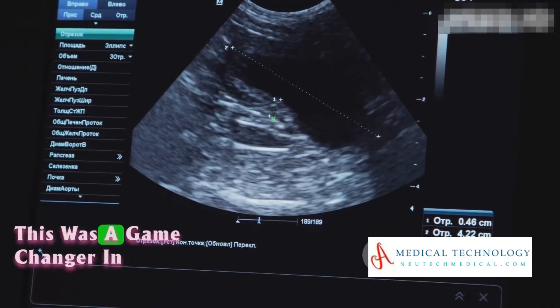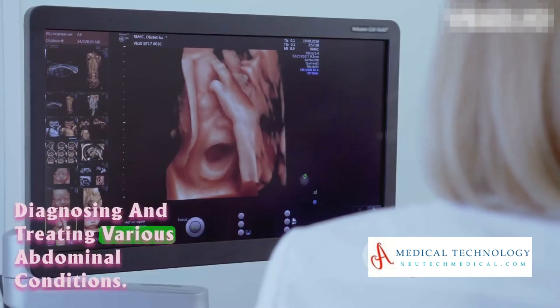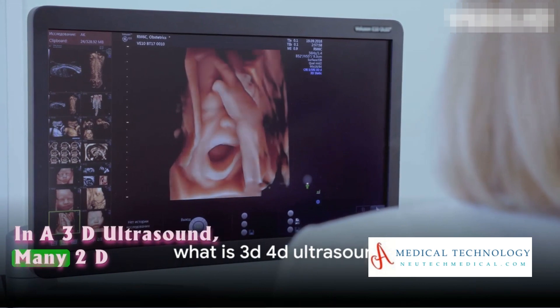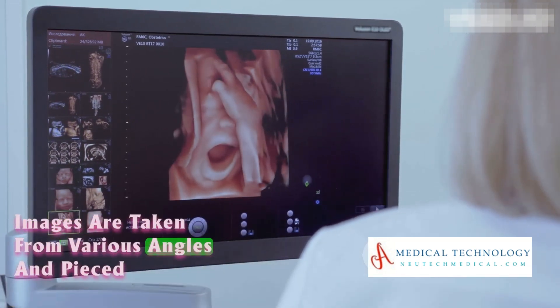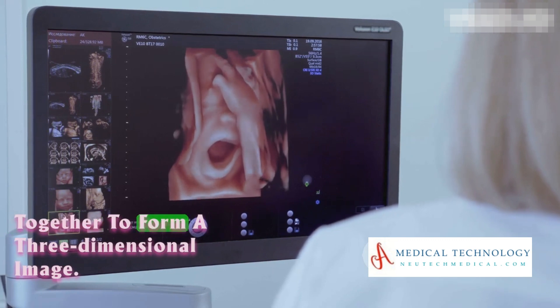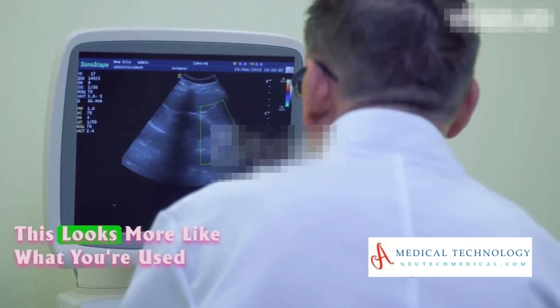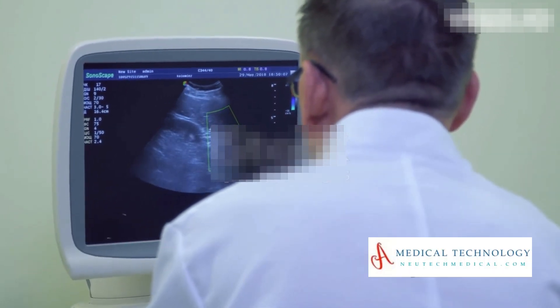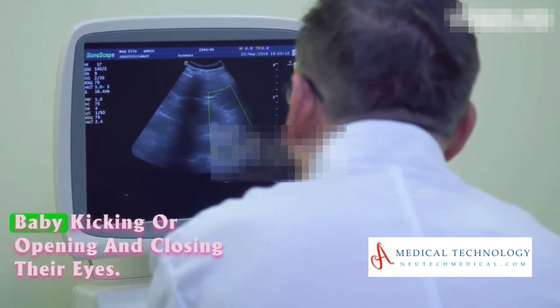This was a game changer in diagnosing and treating various abdominal conditions. In 3D ultrasound, many 2D images are taken from various angles and pieced together to form a three-dimensional image, looking more like what you're used to seeing in a typical photograph. 4D is similar to 3D but shows movement, so you can see your baby kicking or opening and closing their eyes.